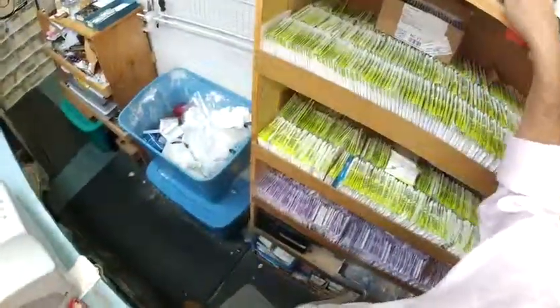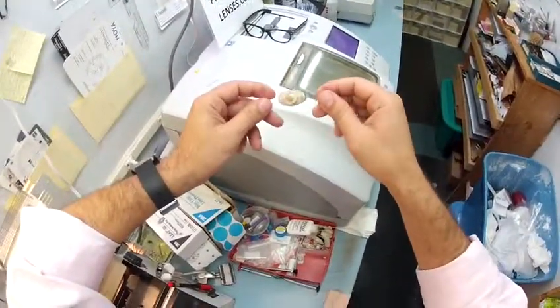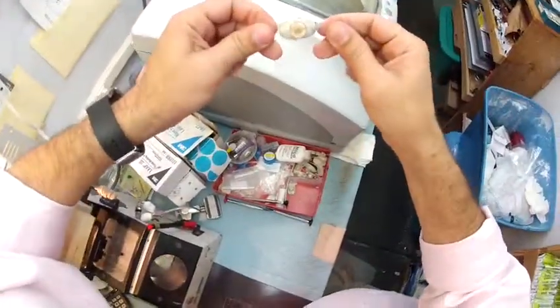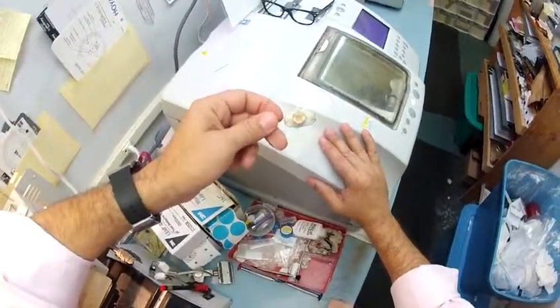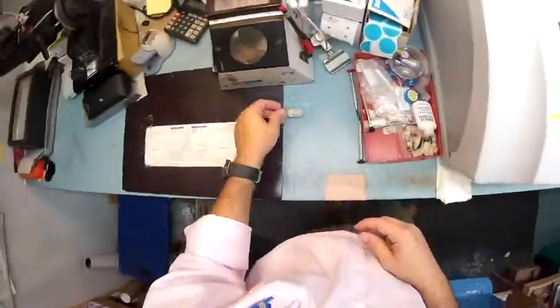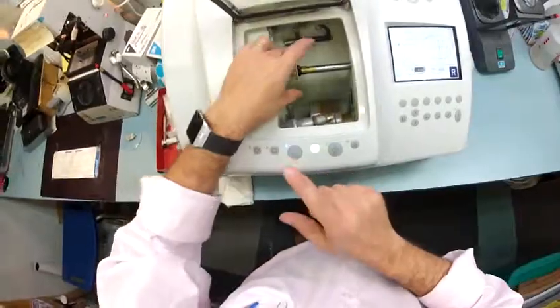There are three different lens materials: glass, plastic, and polycarbonate. Glass is heavy and if you drop it, it shatters — that's why you only find it in sunglasses and no one wears it for prescription anymore. Plastic is the least expensive lens. Polycarbonate is 40% thinner and lighter than regular plastic, and virtually unbreakable. Trina, your lenses are bulletproof up to .22 caliber and have both UVA and UVB protection — permanent sunscreen for your eyes that you never have to reapply.